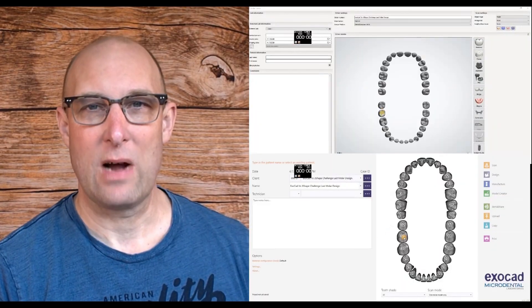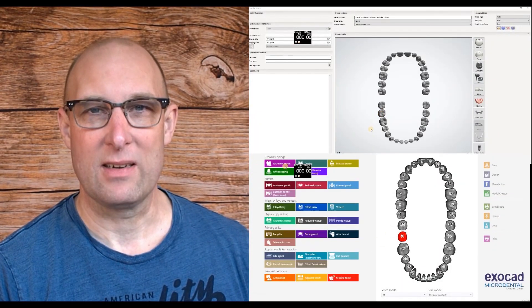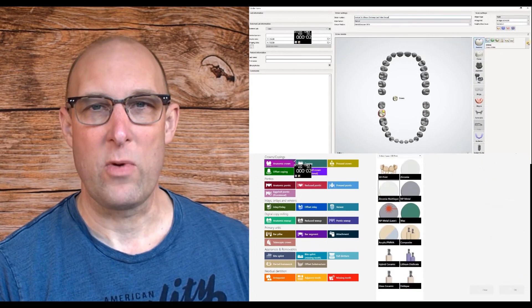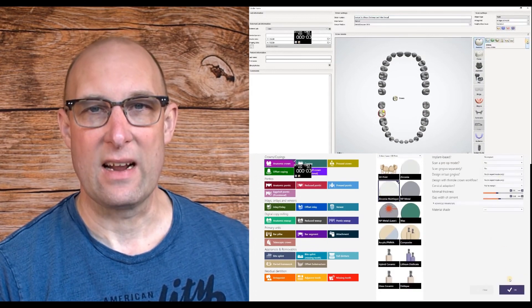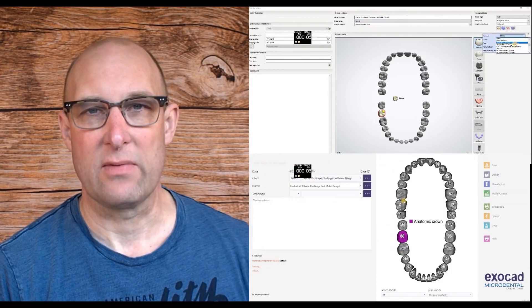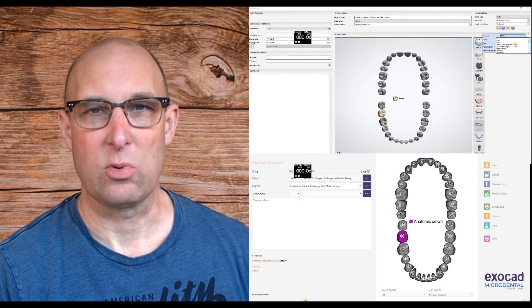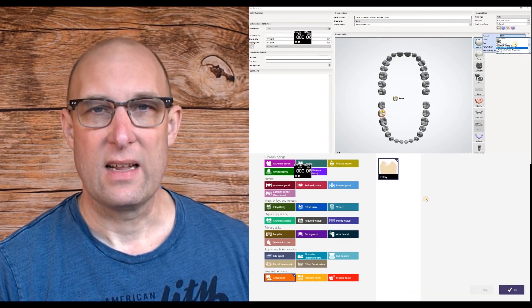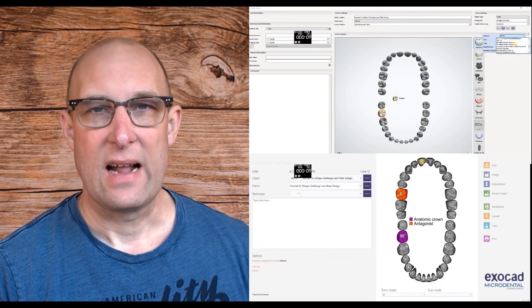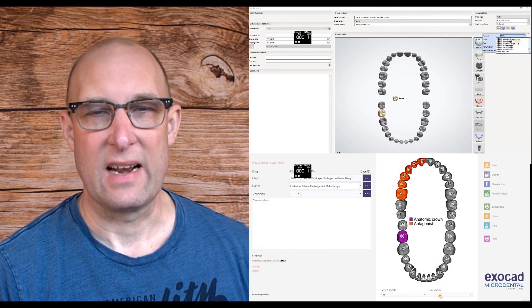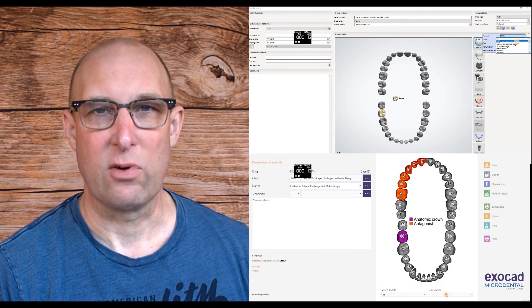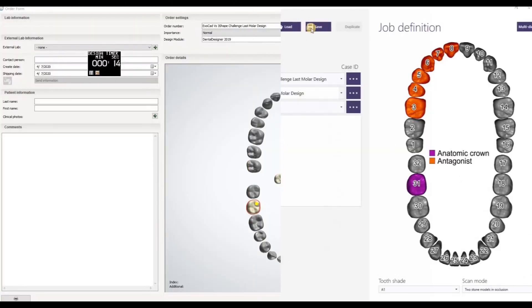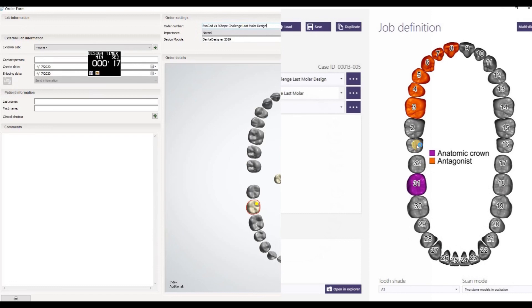Welcome back to our single crown design. Here in the order form, we are assigning the materials and specifications to the crown. In exocad, we can assign the antagonist and adjacent teeth for cropping right away. At this point, the order form on both devices is basically done.